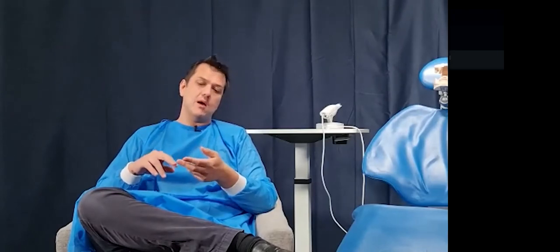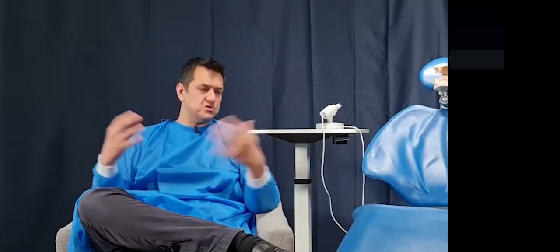That's part 1. We're then going to look at some full edentulous arches, especially uppers tonight. We're going to talk about the 2 ways that you can record them. So you're going to make a new denture, a new full upper, or even an implant restored, but you still need to take a full arch scan. So we're going to do that tonight as well.